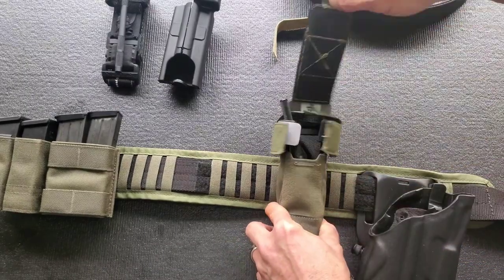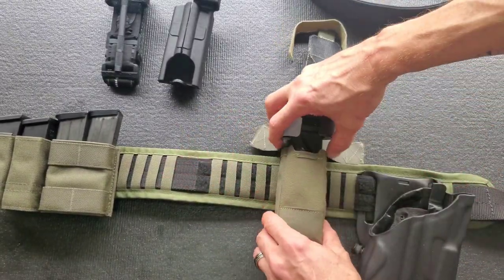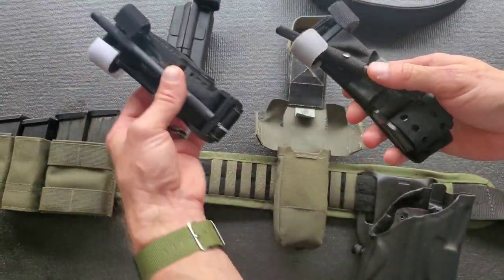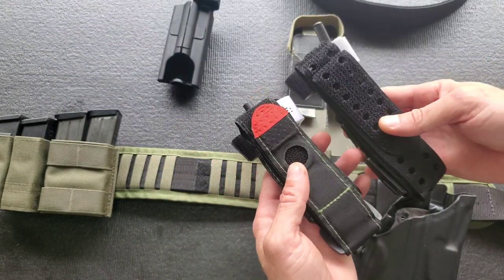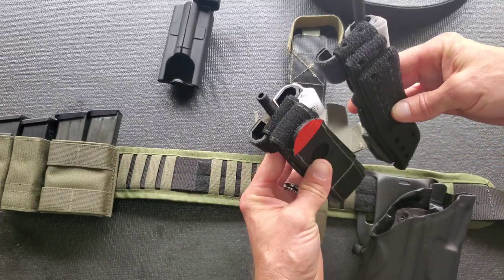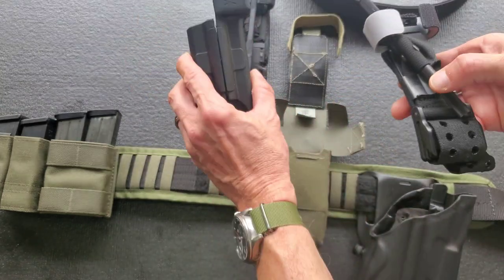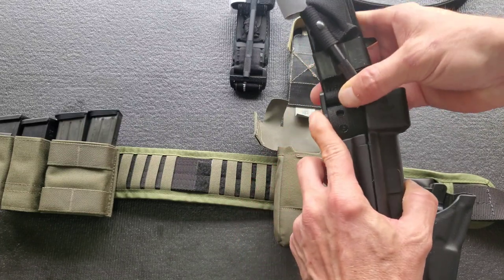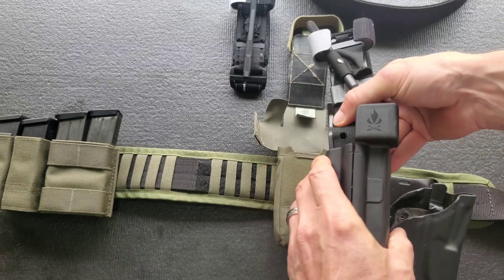The reason this became necessary is because the SAM XT tourniquet is girthy. Comparing it to this Recon Medical Cat4 style, it doesn't seem that much bigger but it just is, kind of in every dimension — especially this big old buckle here. So for instance on this Fieldcraft Survival Kydex unit, it was absolutely not going to fit in there under any circumstances.